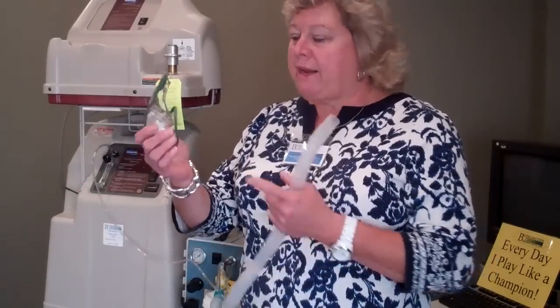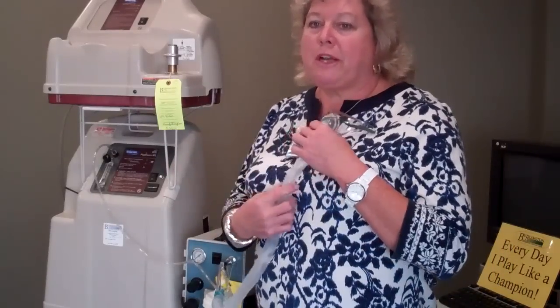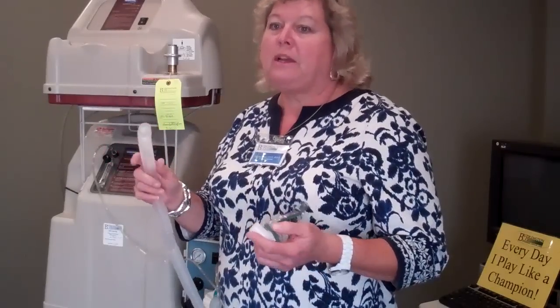The compressor will produce enough flow to nebulize — but remember this is distilled water, not medicine. When hooking up a handheld neb, both are nebulizers because they both produce mist; the handheld neb just goes closer to the patient. For patients who are comatose and bedridden, you can hook them in line, but hooking the neb down at the bottom means the medicine has to travel all that way and the patient probably isn't getting much of it. I try to teach them to hook it up at the tee piece. One end of the tee piece from the handheld neb set may not fit directly — you're going to have a short white hose to hook to the mask.